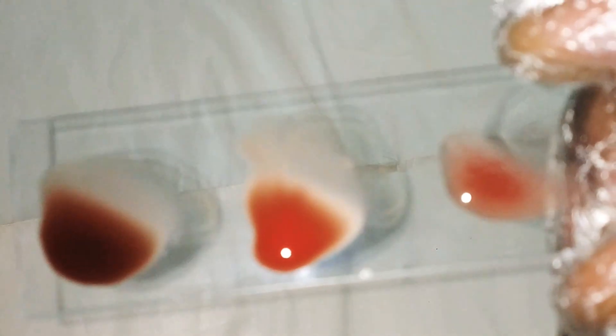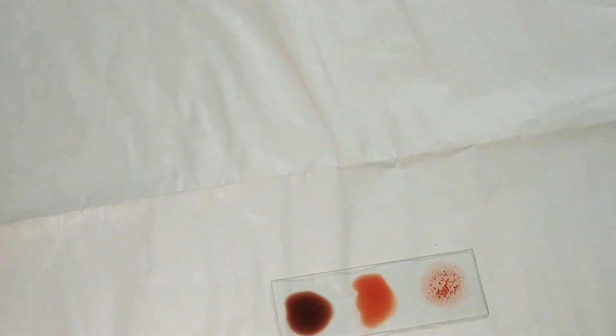Yes, find out the agglutination. Find out in which slide the agglutination is present. This is A and this is B and this is D. In which slide is the agglutination present? Find out and give me the report in the comment section.